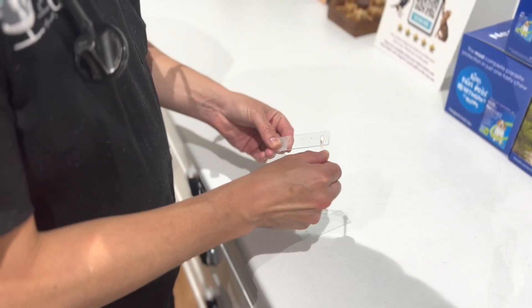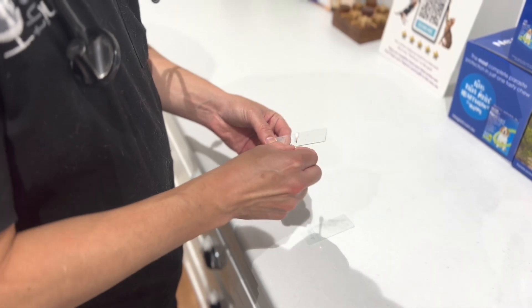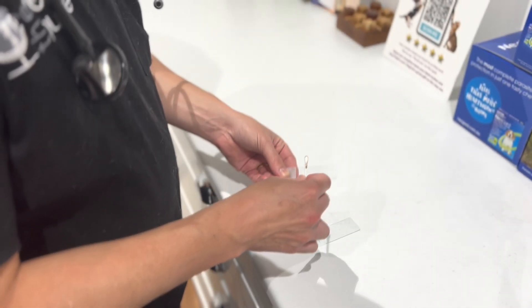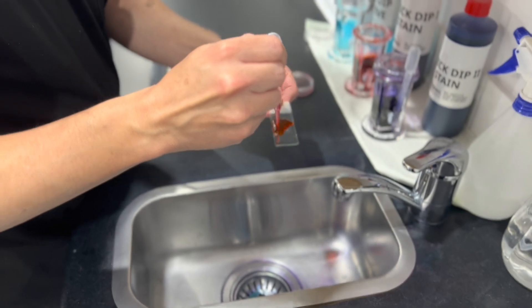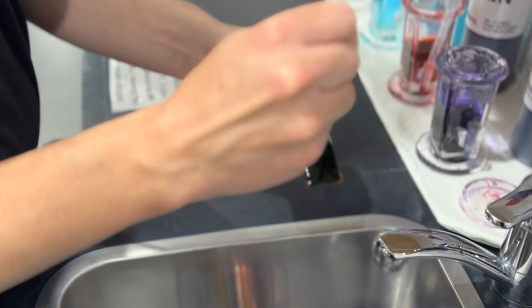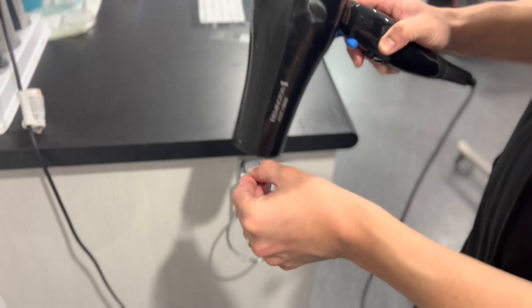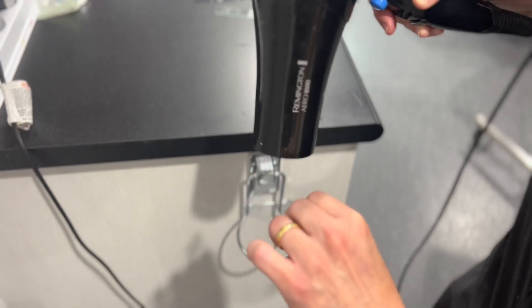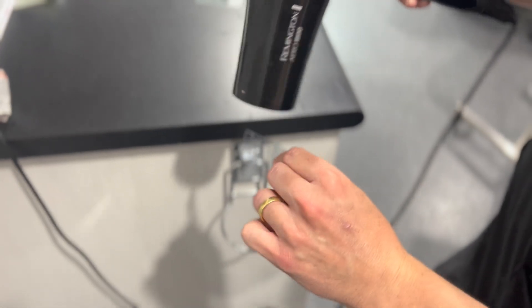Once we collect the sample it will be smeared onto a microscope slide. We then apply special stains which will highlight the different cells. The slides are then dried with the use of a hairdryer to speed up the drying process. When the slide is dry it is ready for examination under the microscope.